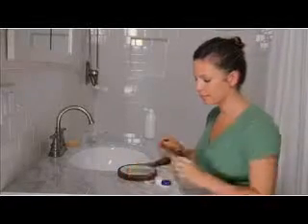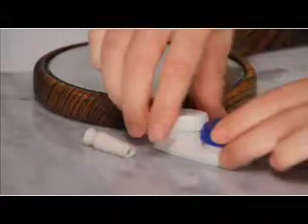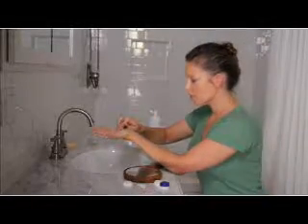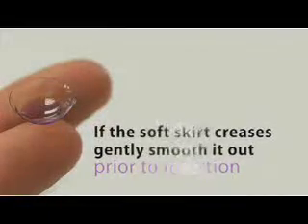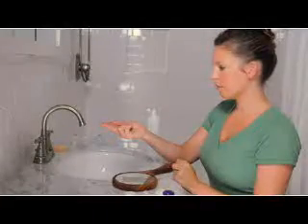It may be helpful to place a mirror flat on the counter to look into as you insert the lens. Carefully remove the right lens from the case using the pad of the finger. Place the lens in the palm of your hand and rinse the lens with the solution recommended by your eye care professional. Unlike traditional soft lenses, hybrid lenses won't turn inside out — it should always have this bowl-like appearance. If the soft skirt folds into the bowl or creases, gently smooth it out with your fingers prior to inserting. While verifying the lens shape, inspect it for debris and nicks.